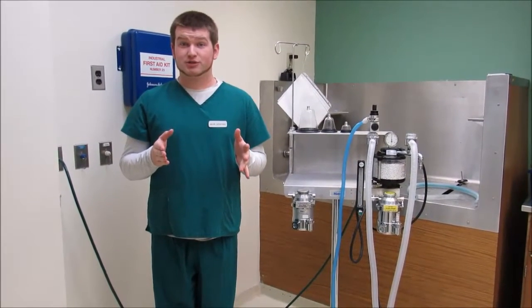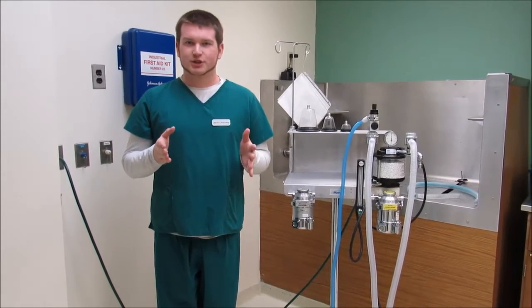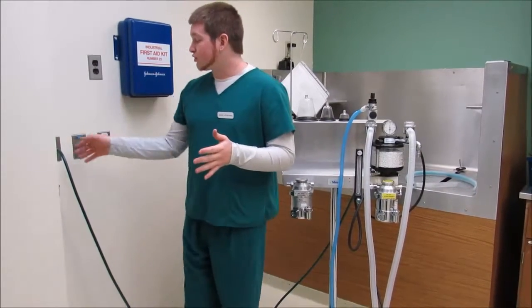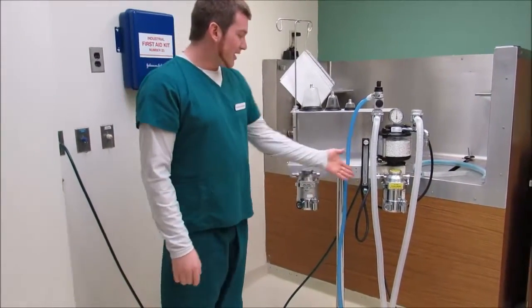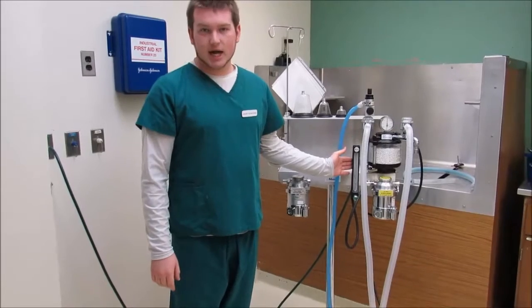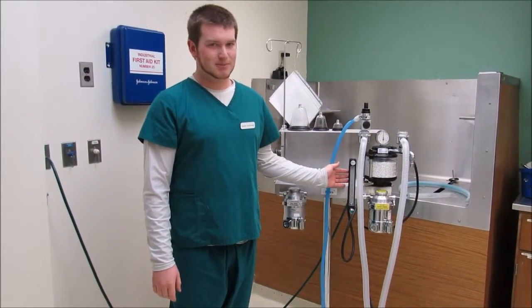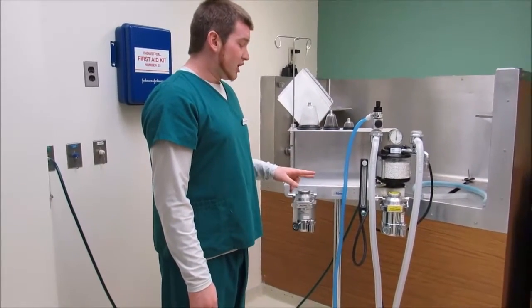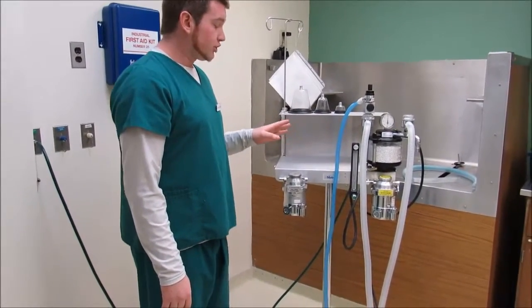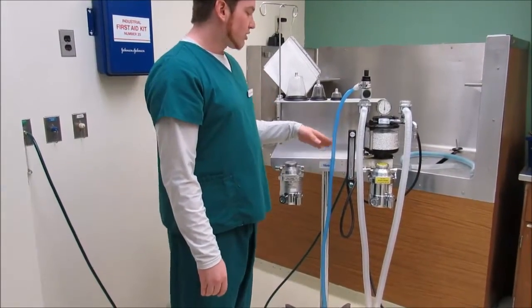It is then reduced from a pressure reducing station to 50 psi, comes through the wall here with this green hose, and goes to the flow meter, where the flow meter takes the oxygen and brings it down again to atmospheric pressure at 15 psi. Okay, so from the flow meter it can go two places. It can go to the oxygen flush valve, or it can go to the vaporizer.